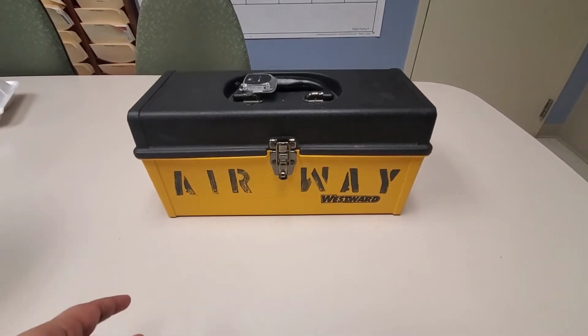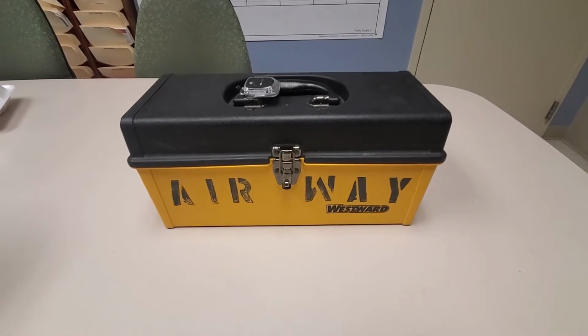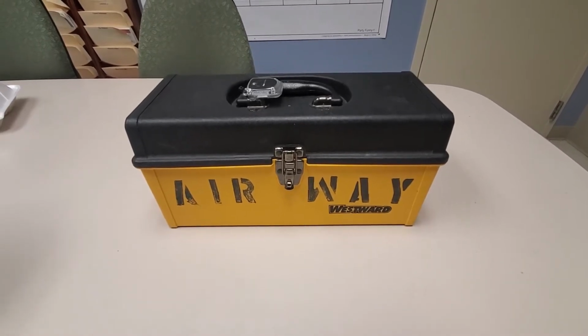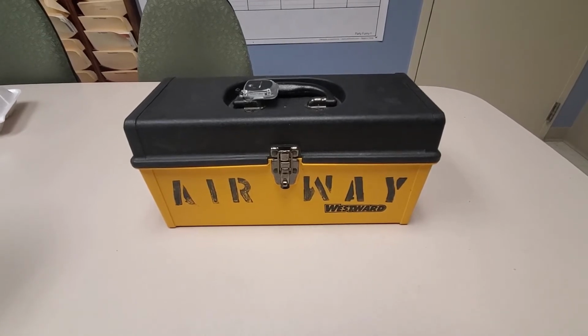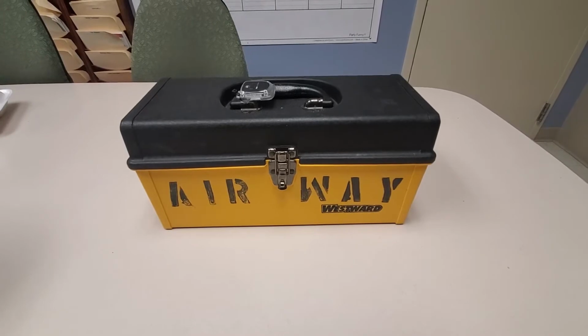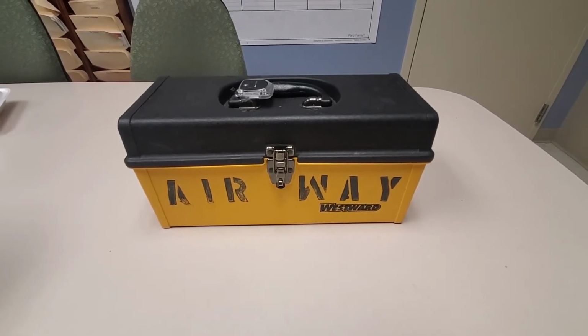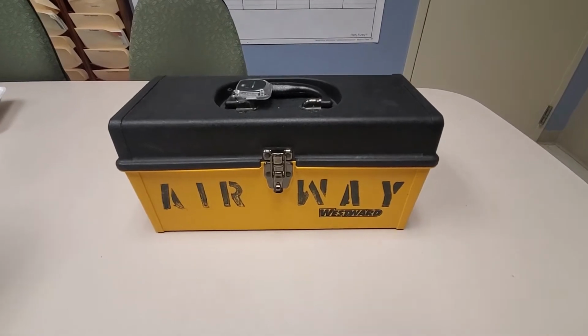But to start off, we have two Airway Boxes on each side of our ICU. One is always going to be on the crash cart and another is going to be in the medication room. So if you don't have one on the crash cart, go to the one in the med room. Either way, we send these Airway Boxes when they're opened back to Central Supply. So I'll also go over how to use that, but we'll just dive into what is in this box.